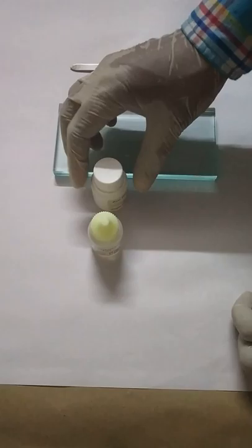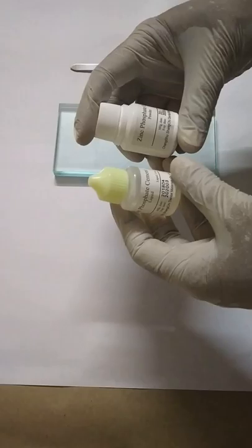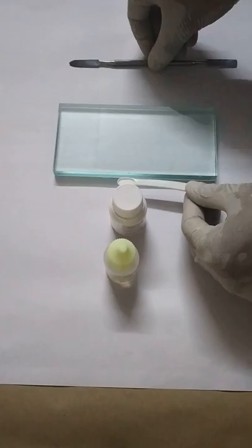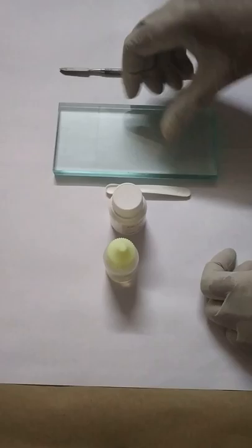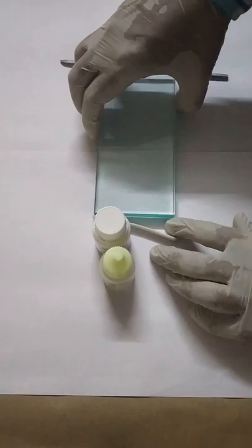Hi everyone, and today we will talk about manipulation of zinc phosphate cement. For manipulating zinc phosphate cement, we require powder and liquid, a mixing scoop to dispense powder, narrow bladed spatula, and a cool dry glass slab.